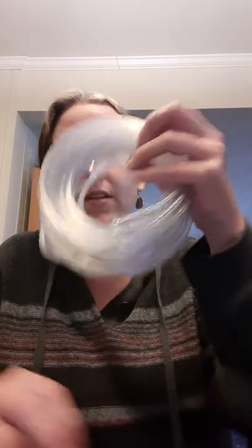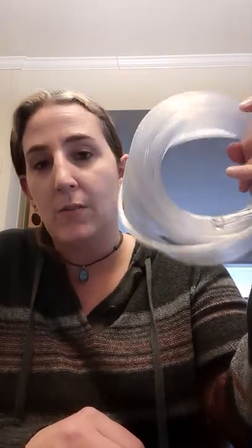So you just take one of these room oxygen tubings, cut it to your length, and save the other piece for when you have to dispose of it and use a new one because of sanitation — however frequently you do that. I learned this today and I feel very silly because all that was, was a snipped-off end of equipment tubing. That's just all that happened.